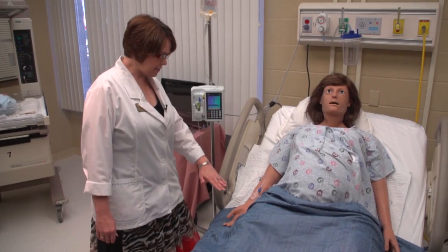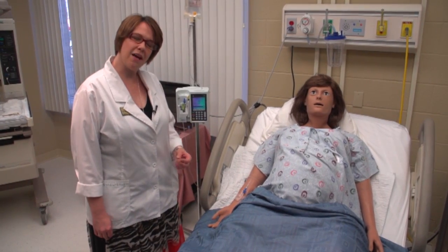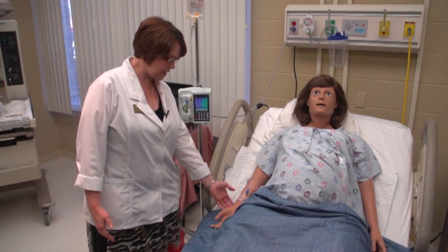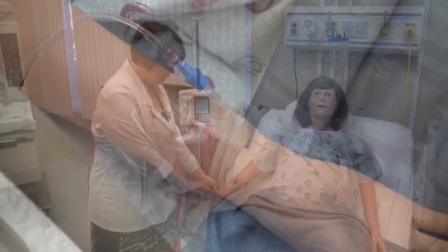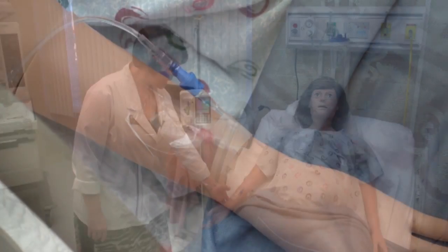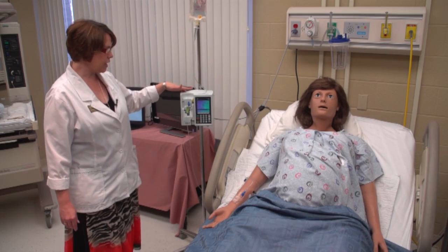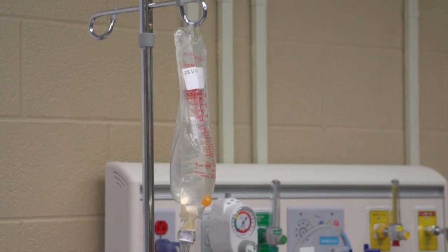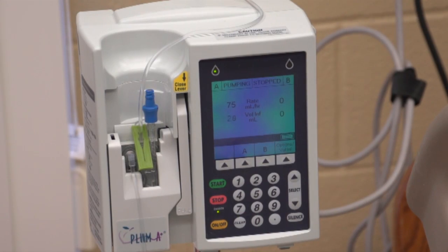Victoria also has the capability of accepting IV fluids, which is part of making the simulation realistic. So the students can put in an IV catheter, simulate fluids running, and get an opportunity to work with the equipment and manage the IV pumps.